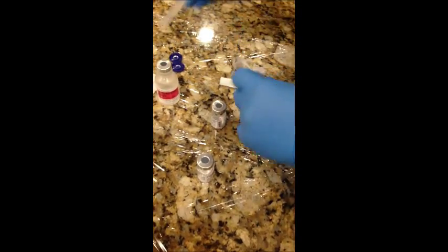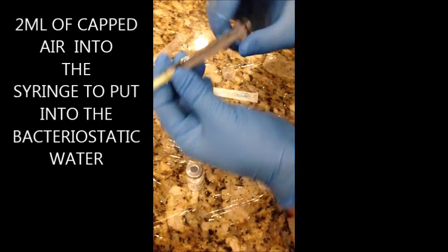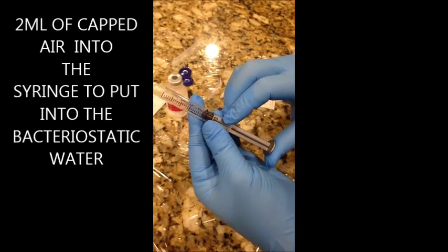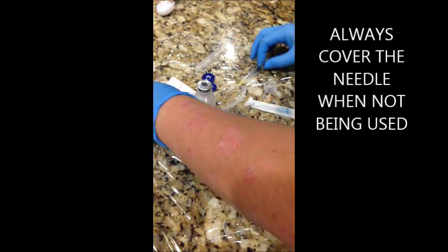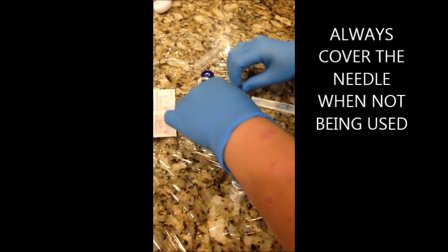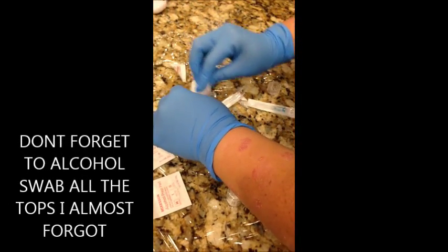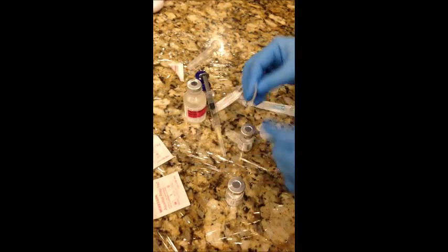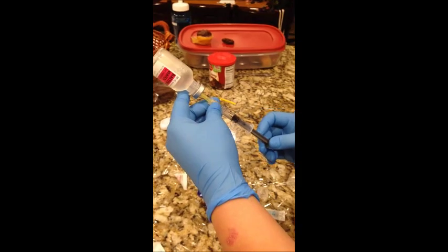Connect the needle to the syringe. You're going to take two ml. First, you want to wipe this off — it's been exposed, so you have to be very adamant about cleaning these off. Push it up in here so it doesn't give you that pull from sucking all the air out, and take up two ml.